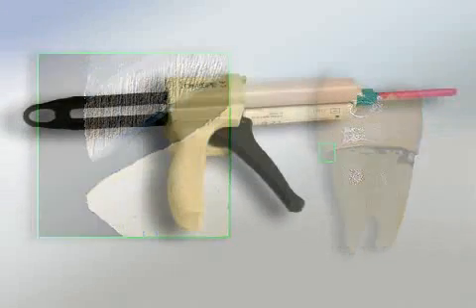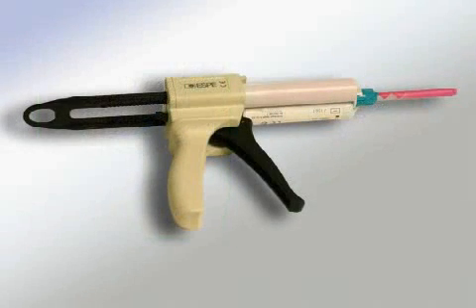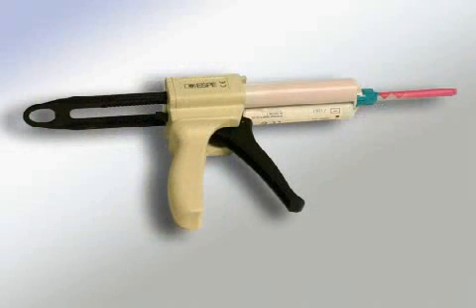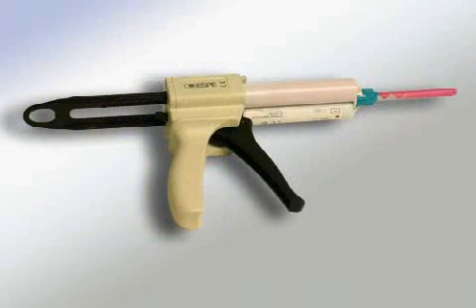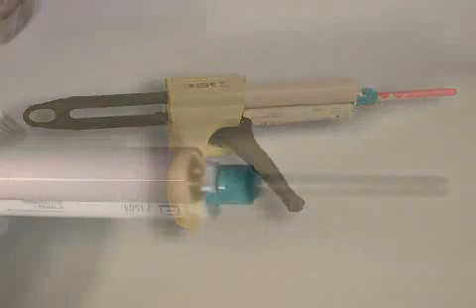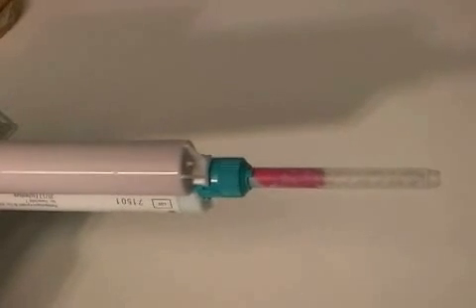Good impression quality is achieved with pre-produced cartridges. Material usage is higher, but the advantage is that the materials are mixed at specifically defined rates. This helps the technician get a precise impression, and in the end, you get a tight, well-fitting denture.